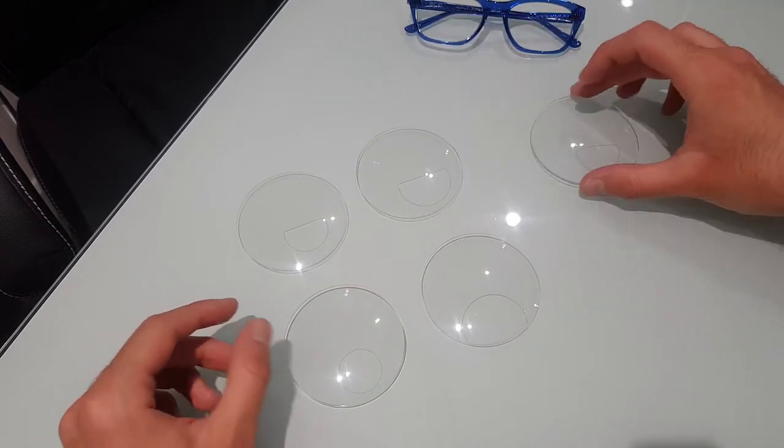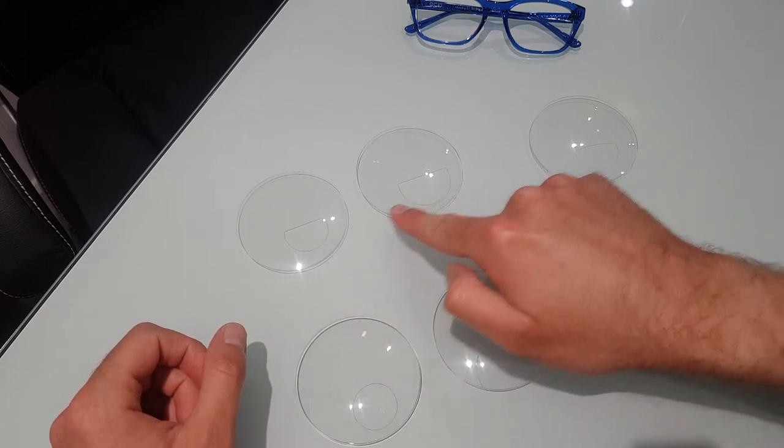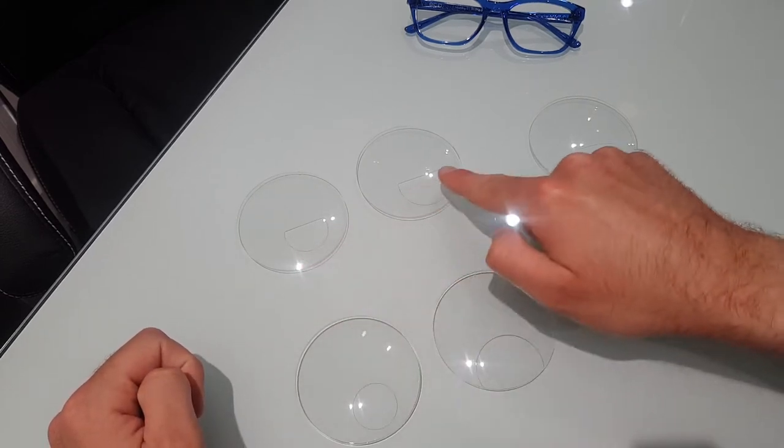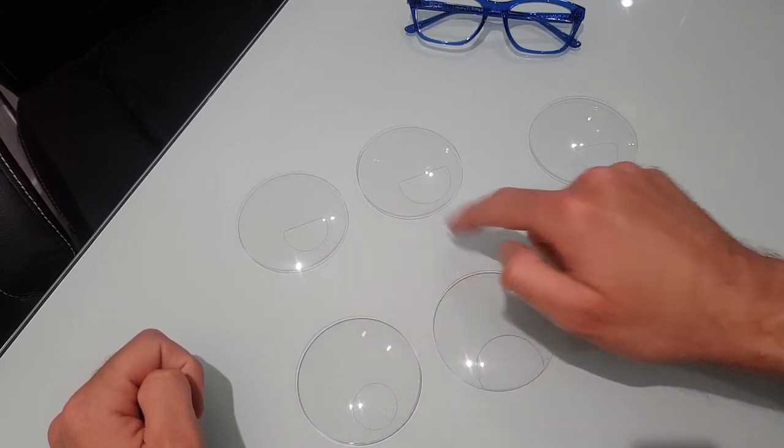You can put them into really three categories. You can put them into what we call DSEGs. And when we talk about a SEG, we're talking about the section of the reading area. So this is what we call a DSEG purely because of the shape of the segment.